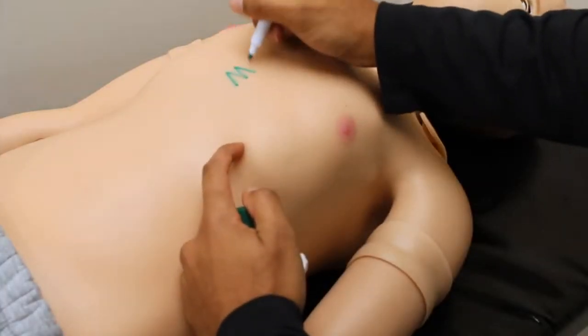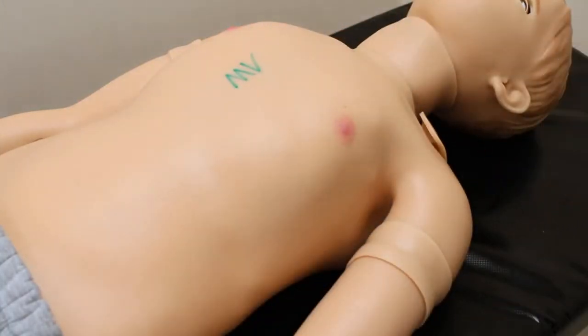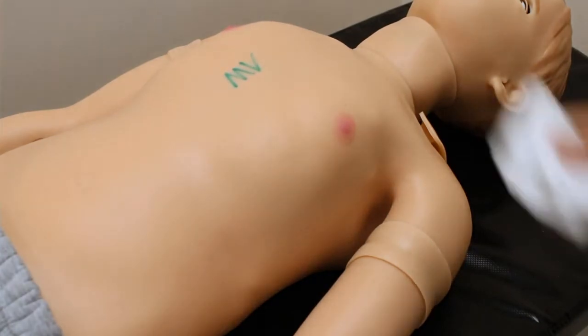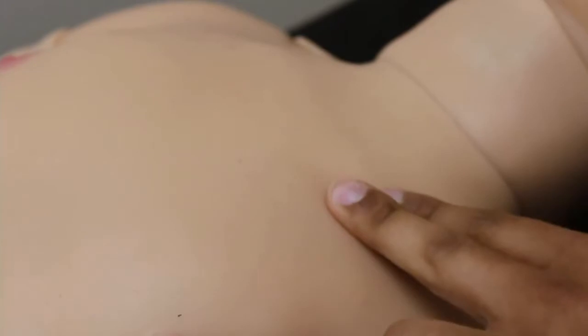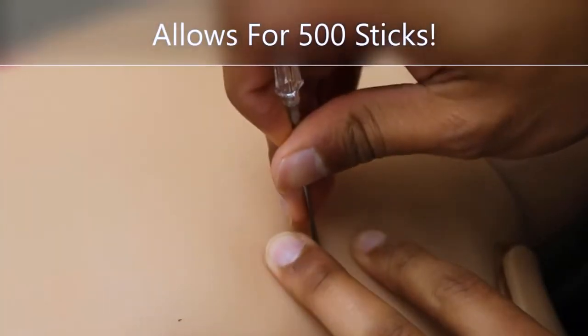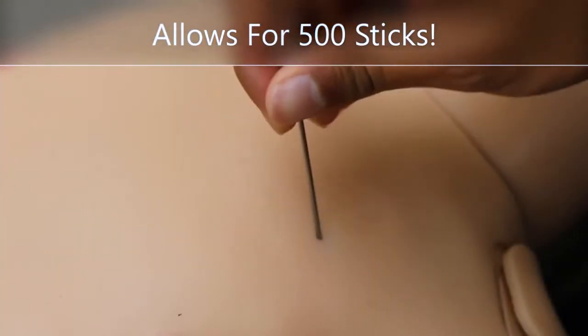His customized skin allows you to have the ability to write on him, and it also allows for easy cleanup. The skin is also self-repairing, so any needle won't leave puncture marks.